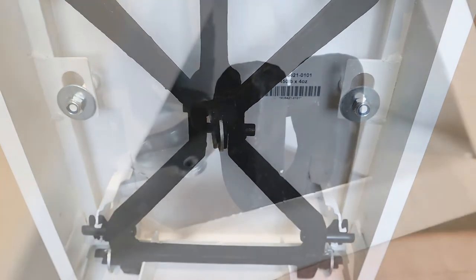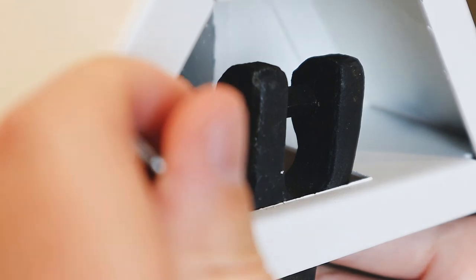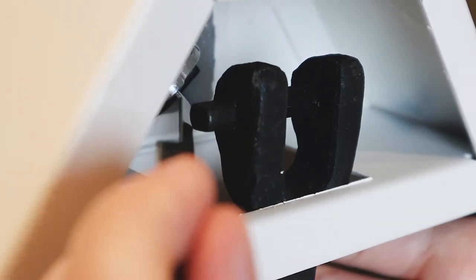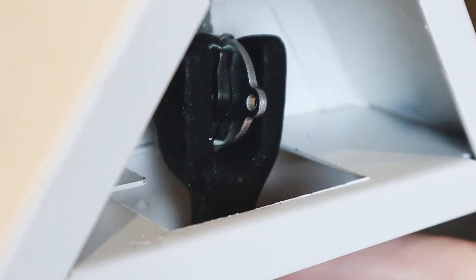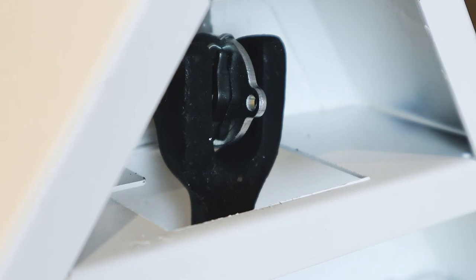Insert the hooked end of the included wrench into the small hole in the front of the draft rod and pull the draft rod hook with the wrench to connect it to the long lever in the scale base. Push the long lever forward and hook the draft rod's hook onto the long lever pivot.